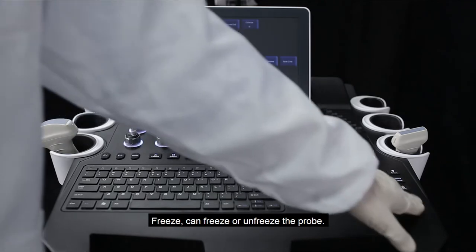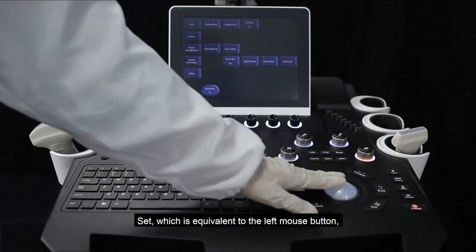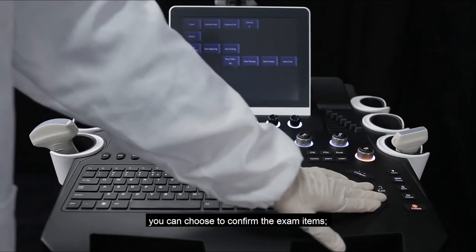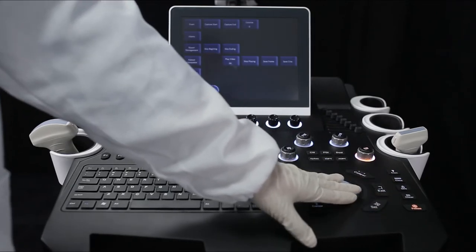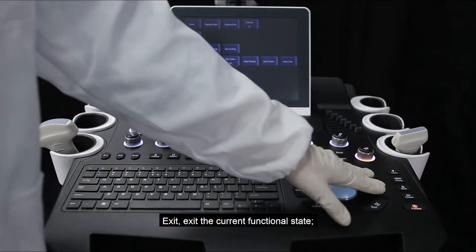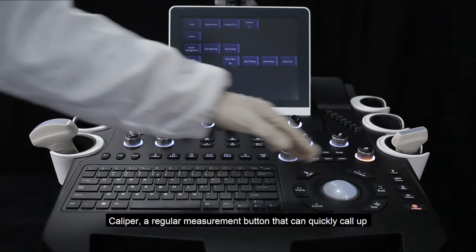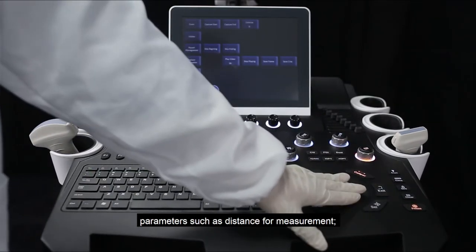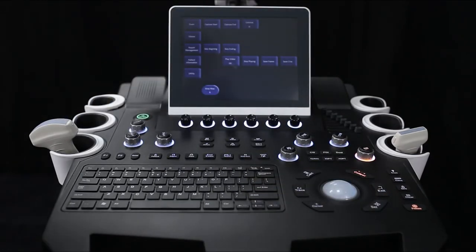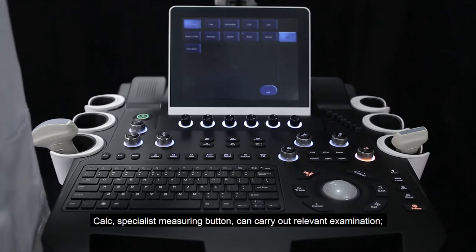Freeze can freeze or unfreeze the probe. Set is equivalent to the left mouse button and can be used to confirm exam actions. Exit exits the current scan and functional state. Caliper is a regular measurement button that can quickly measure parameters such as distance.